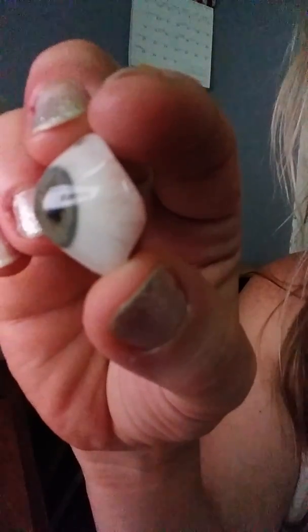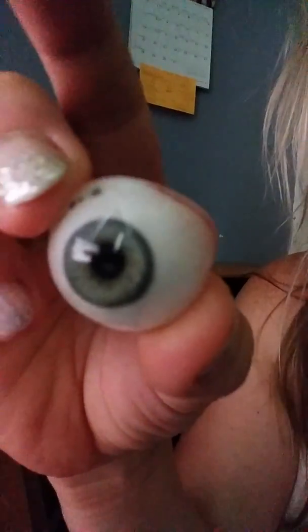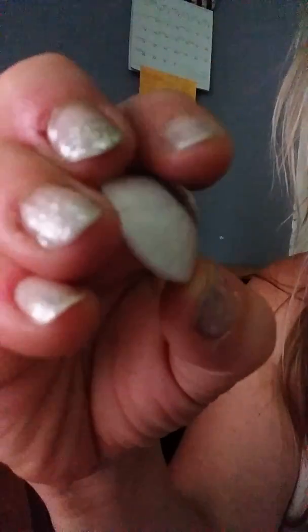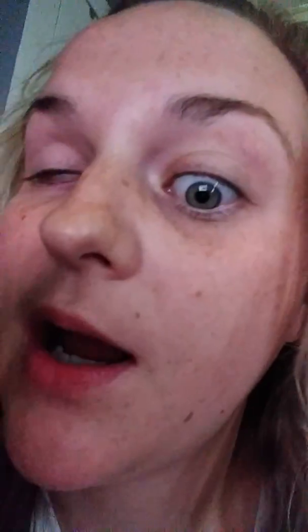You can even see she hand painted all the red going around it like a real eye. It's a pretty interesting experience because I mean, who can literally paint this to match your eye?